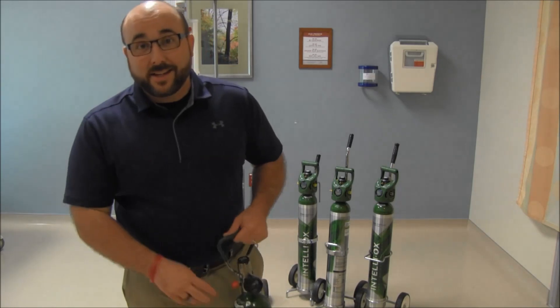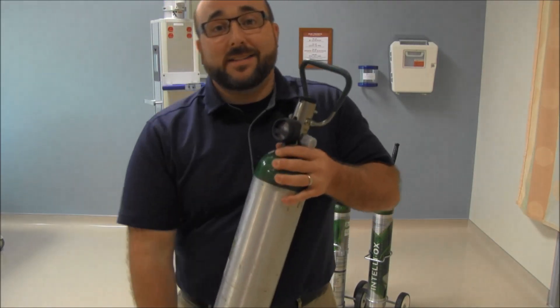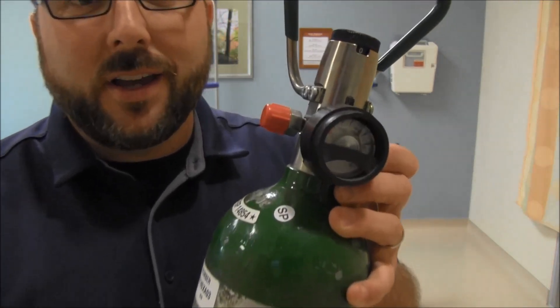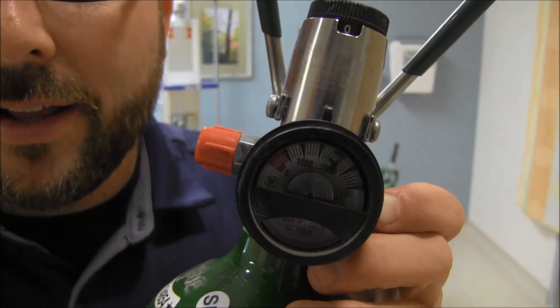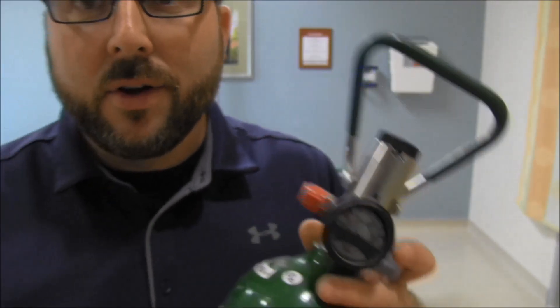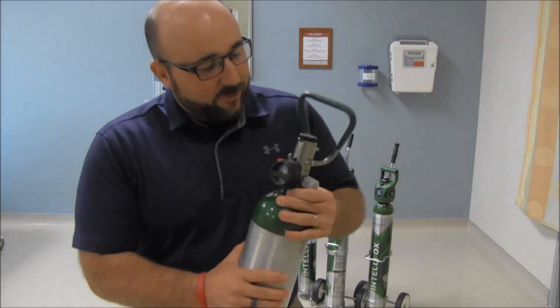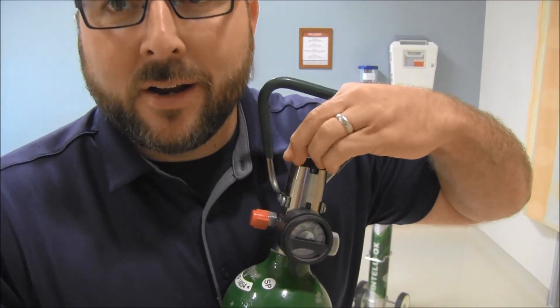Not everybody can tell how long your oxygen tank is going to last by what your manometer gauge says. In this case, we're looking at about 2100 PSI. What does that mean when it comes to delivering oxygen? I know I have liter flow on the top that I can adjust right here.